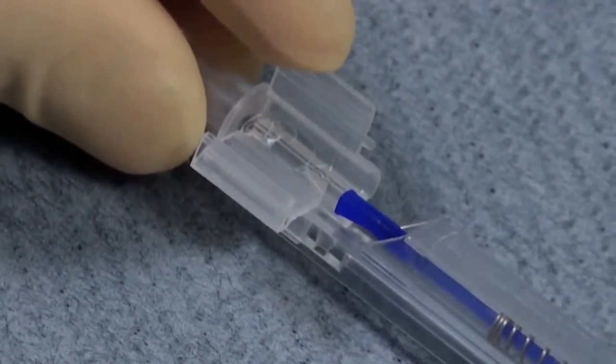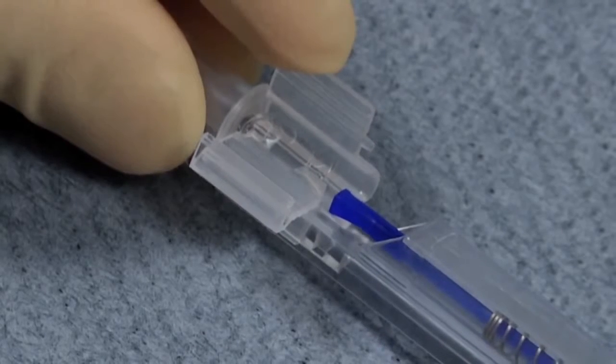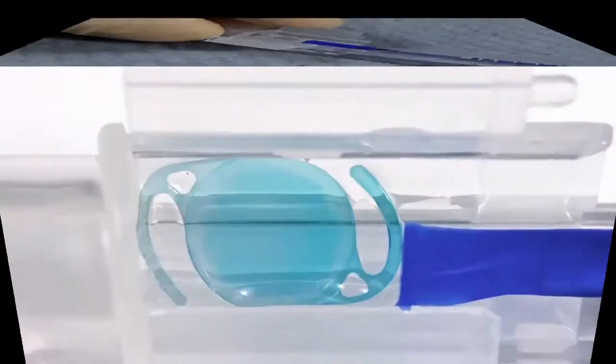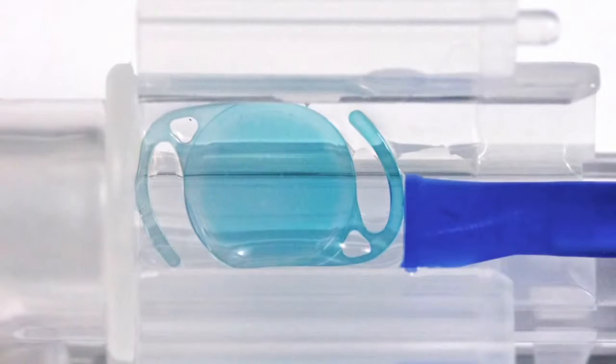Slightly close the cartridge wings to hold the lens in place and then advance the plunger such that the haptics are compressed as shown. The compression is correct when the haptic is pointing toward but not touching the optic.